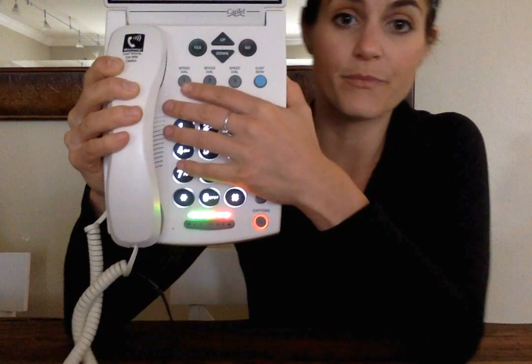So if you decide you want to put a number into one of these buttons, you can, or you can leave them so it is nothing at all, so that these buttons do nothing. As simple as you want it, you can make it. If you want it to be more complex, you can make it more complex as well.